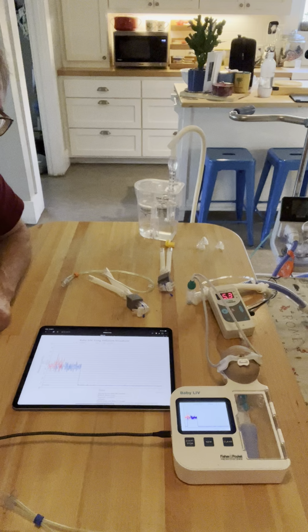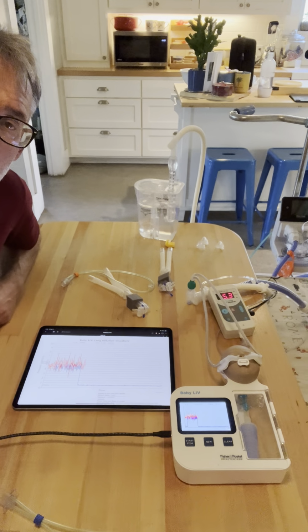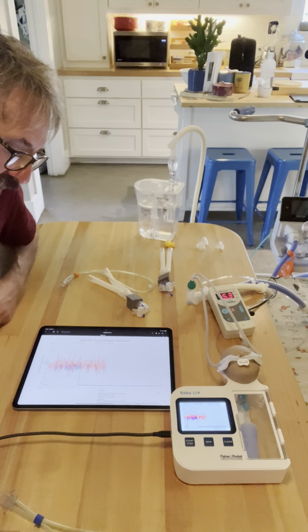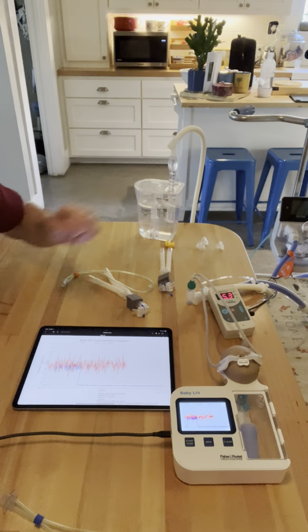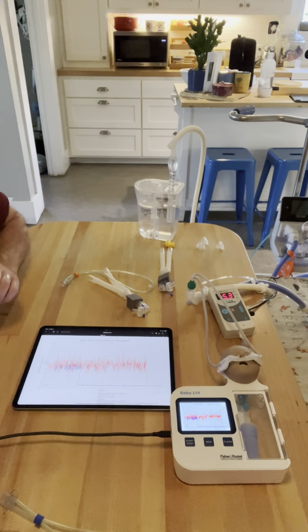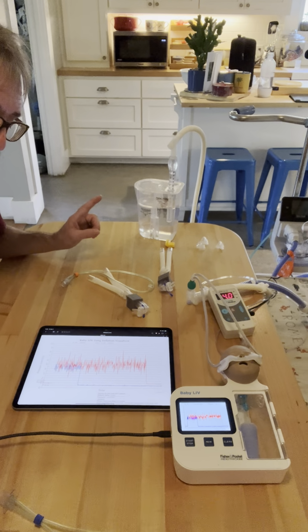And as expected, it lays right over the orange. In fact, it's actually reading the best of the three. It's running a little bit higher. This one is truly the big boy. It's reading about 5.3 centimeters of water pressure. And when I take the pacifier out of this guy, the bubbles stopped. The bubbles have stopped.